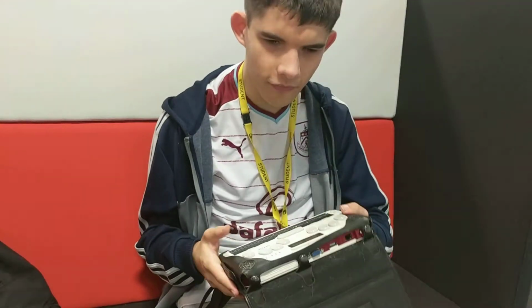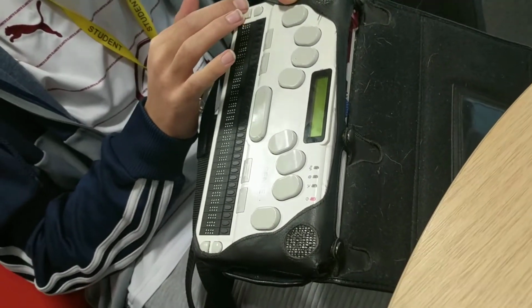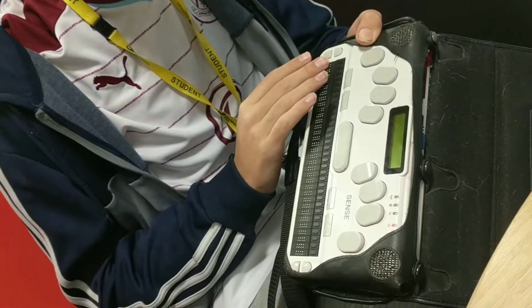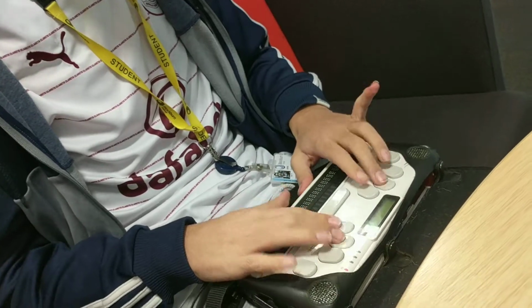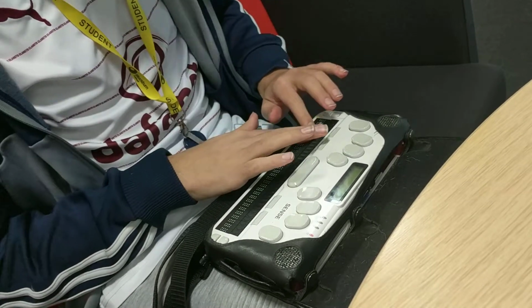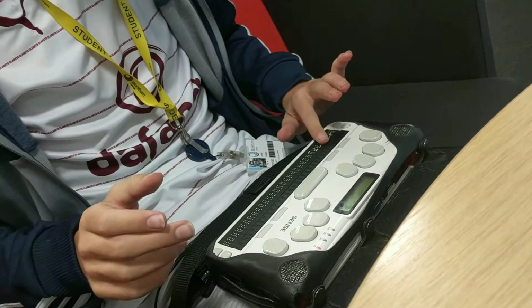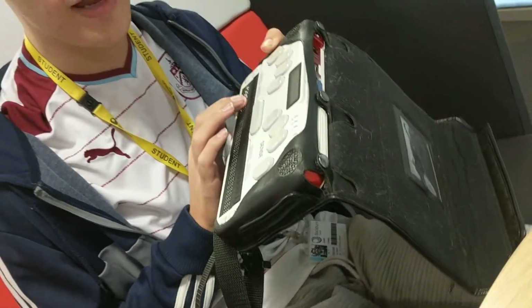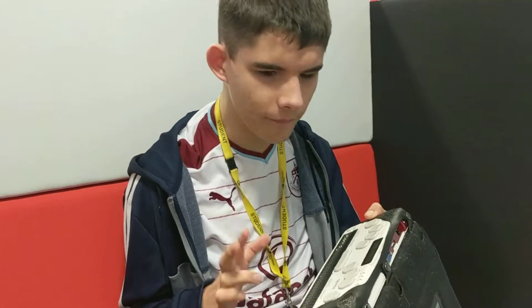Now, you might not be able to see this, but this here is the Braille display, and at the top left is a Braille cursor, dots 7 and 8. So if I was to press space on that, you could see the cursor's moved. Or if I typed in, say, my name for instance, J-O-R-D-A-N, you can now see that the cursor has been replaced by the letters of my name. The Braille display comprises 8 pins, and each crystal moves each pin to create a dot. The cells on the Braille display are really delicate, so you've got to be really careful with them.